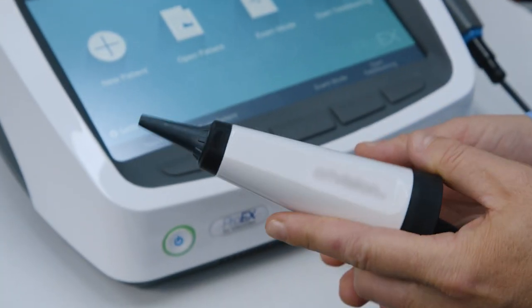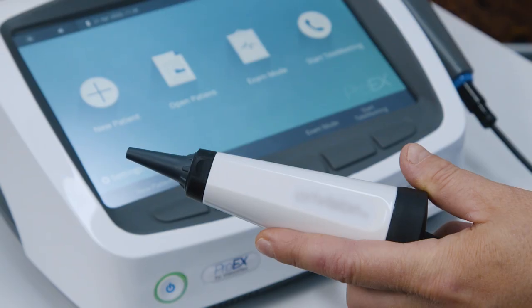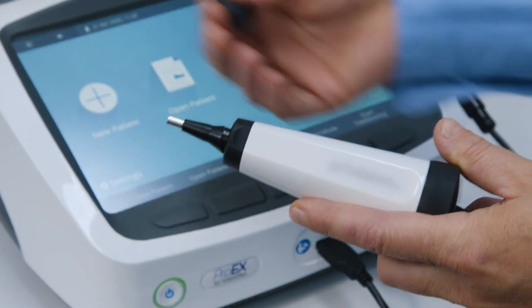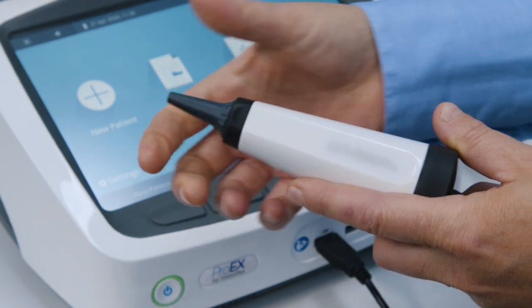The video otoscope enables you to carry out ear examinations in high resolution. The otoscope also comes with disposable speculae to ensure patient hygiene.